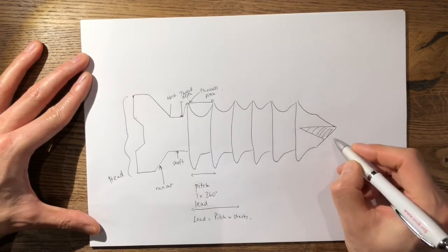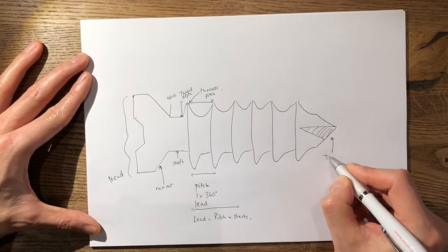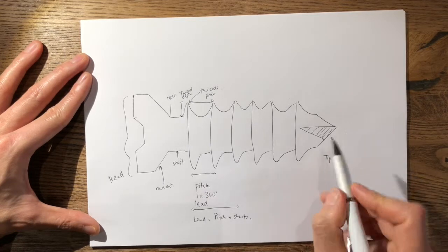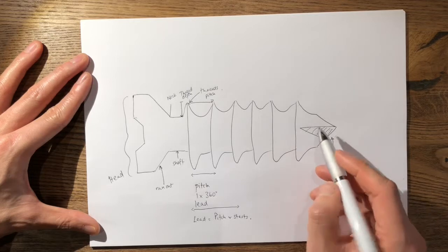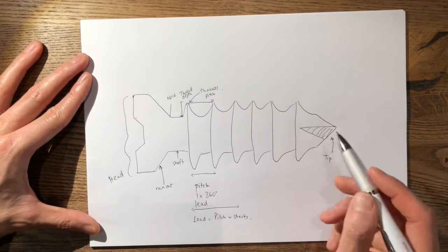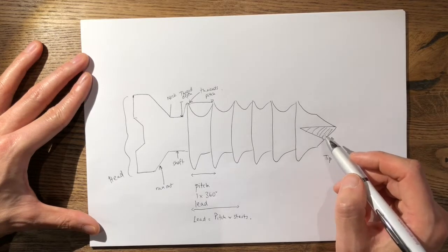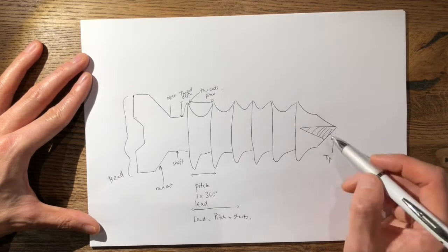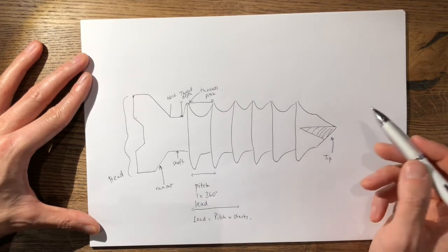At the tip, the tip of the screw can either be blunt or sharp, and it can have flutes. If it has flutes, it normally has two or more, and this allows the screw to remove bone as it is turned, allowing the screw to self-tap. Combined with a sharp tip, it can also self-drill.